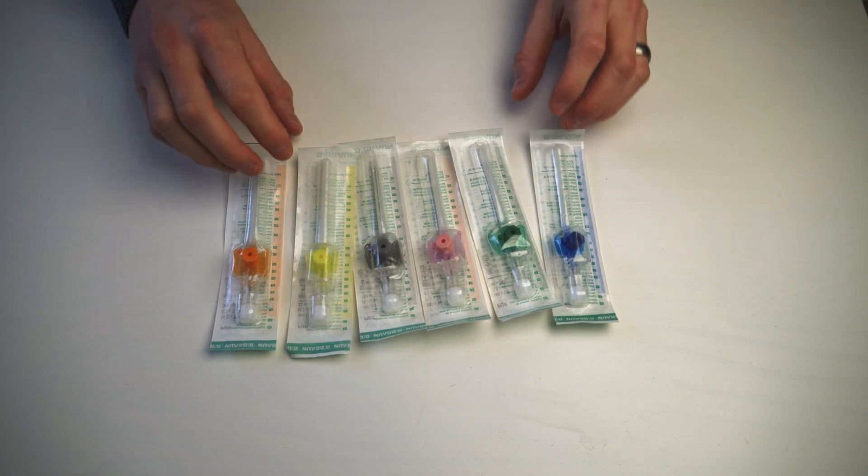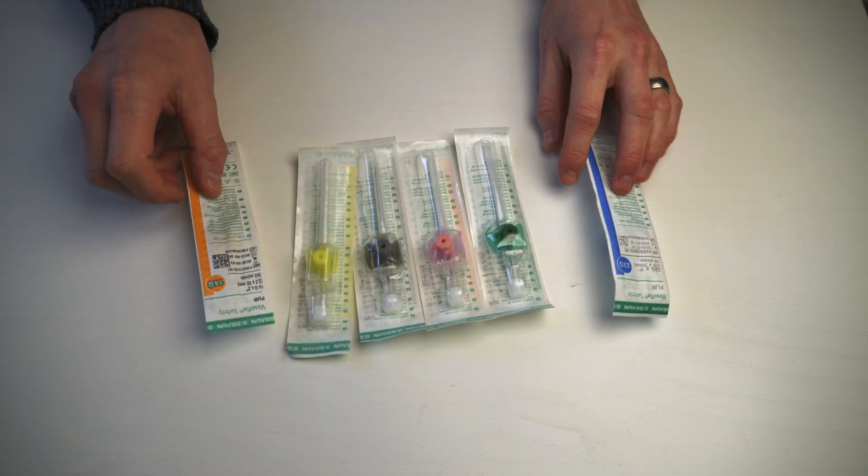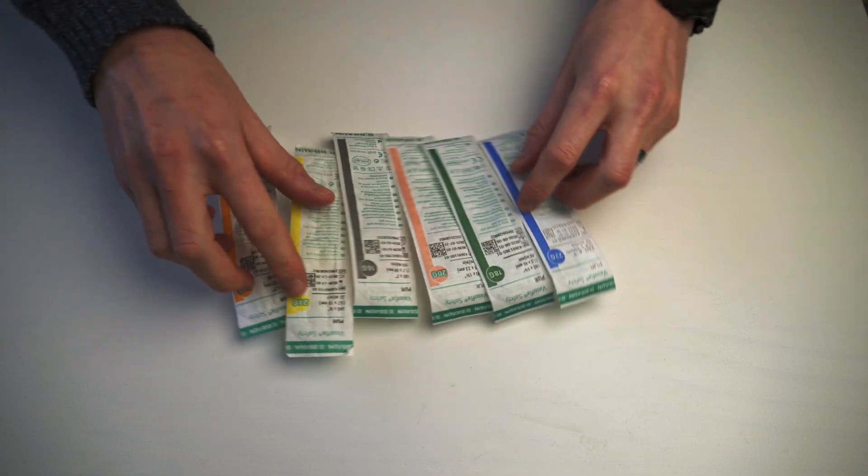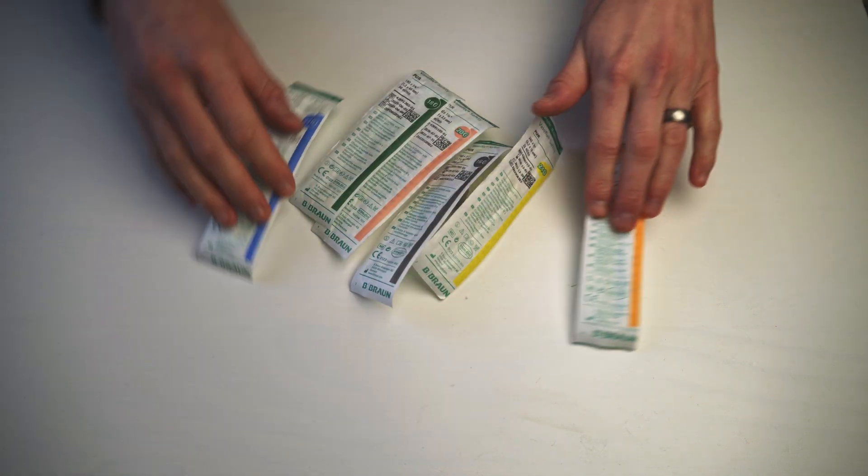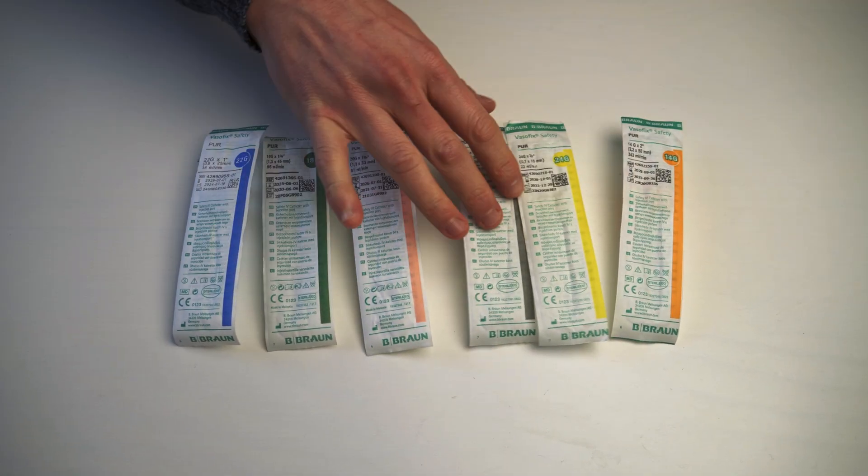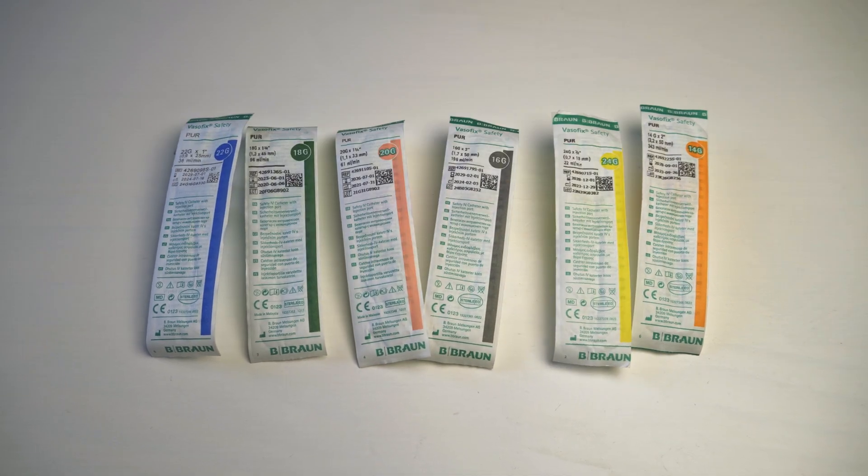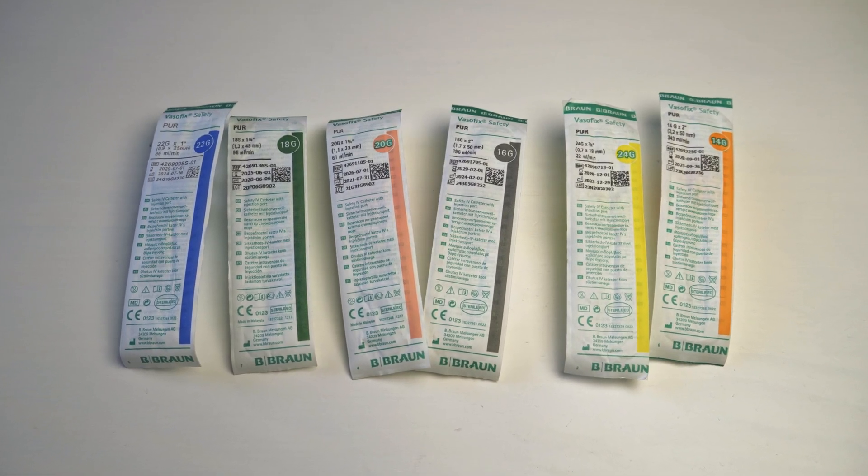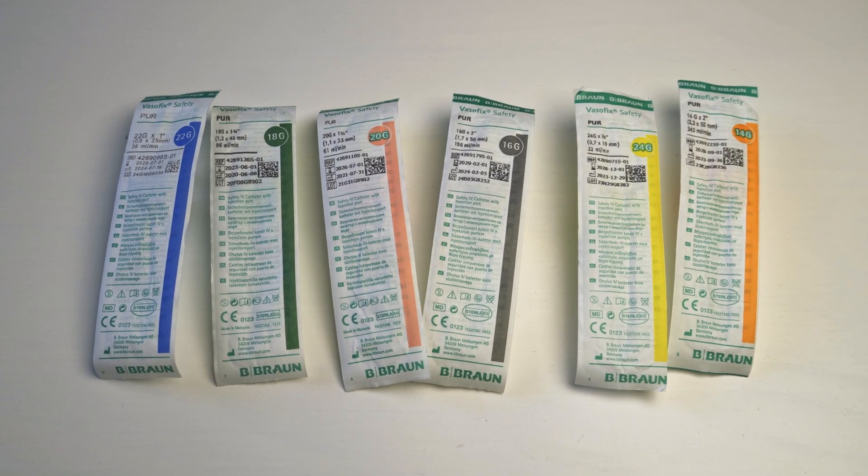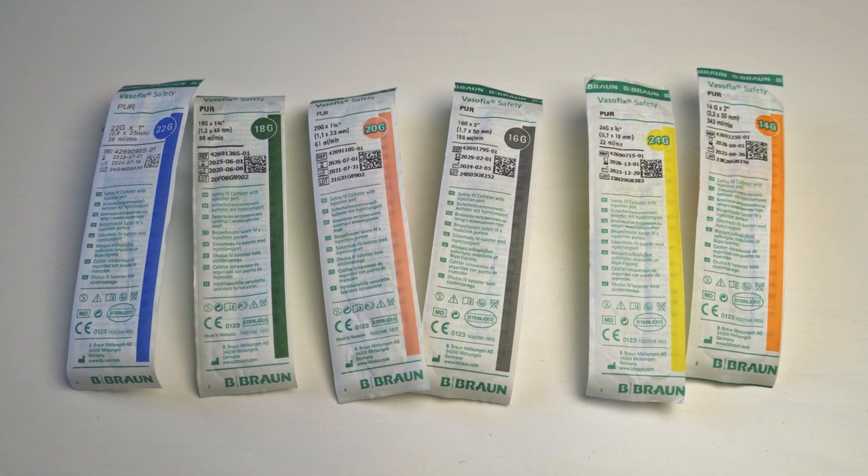We get different colors and different sizes. Every color represents a different size. Please don't go on the fact that a specific color is a specific size because not every country and not every brand is going to use the same sizing. So we can't trust that the color means what it is.